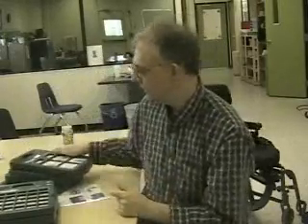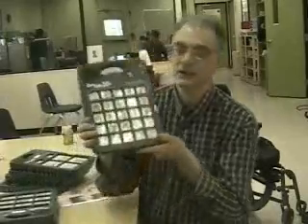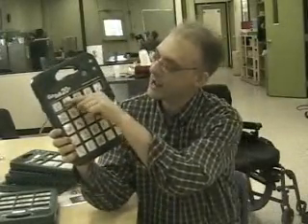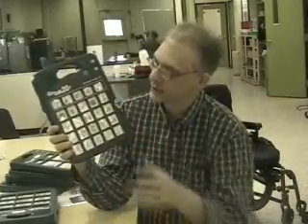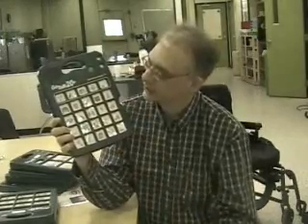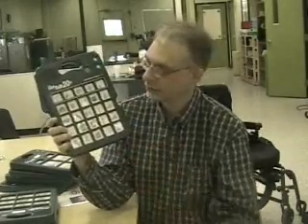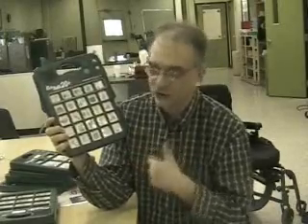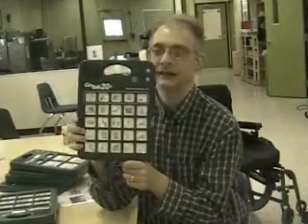And if I really have somebody who's pretty sharp, here's a GoTalk 20 Plus. Okay, I have 5 static messages up here, plus 20 more down here that I can use. And this is all parts of the body and grooming, and so I can include a few more like trimming nails and ankles and water and soap, separate categories here.